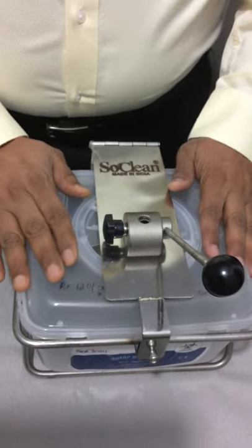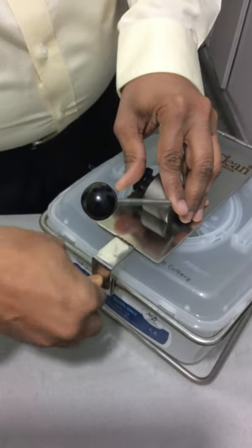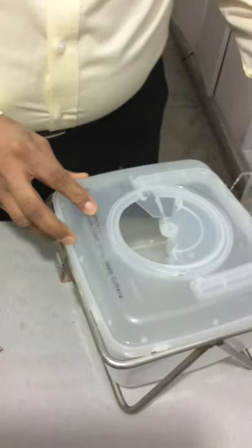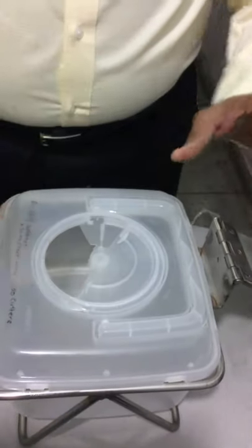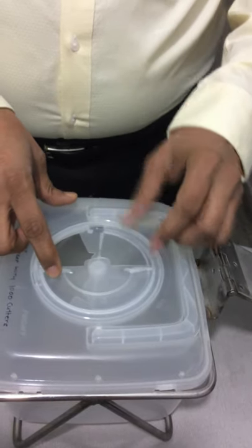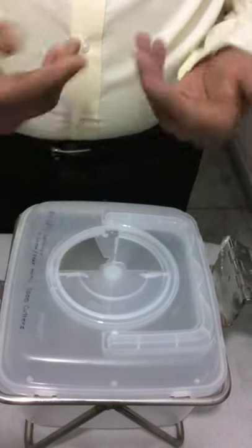The second part is a white translucent container in which all the cut hubs and needles get stored. There is a small screw — if you open it, the cutter separates and the box becomes visible. It has a small hole with a rotating cover. Once the container is filled to three-fourths, the user rotates the cover until it clicks and locks. Once locked, the hole can no longer be accessed to remove anything.